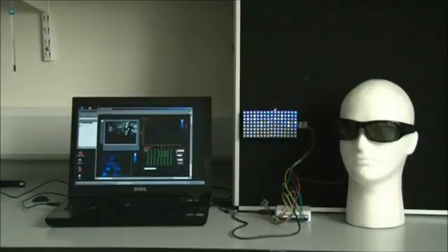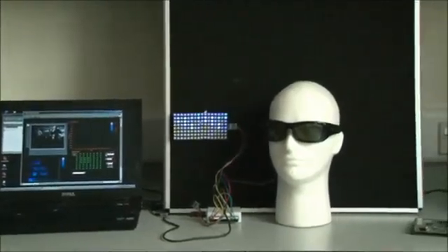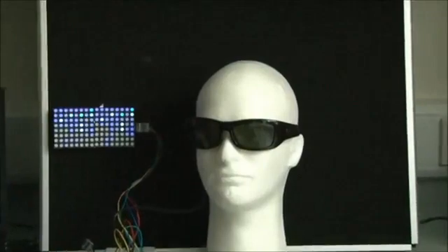What we have here is a demonstration of some of the main components for our visual prosthetic as we've been developing them. The glasses on the polystyrene head there have a tiny camera centered right on the bridge of the nose. This is feeding visual data into the computer, which is doing the first pass of the processing.